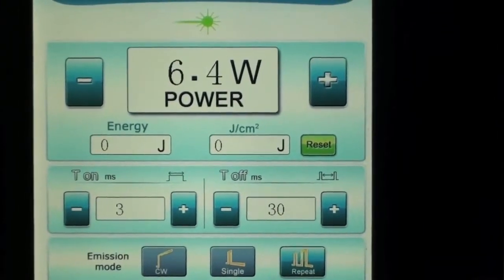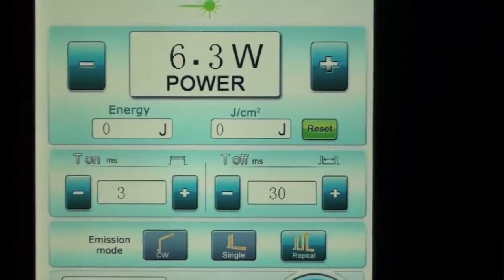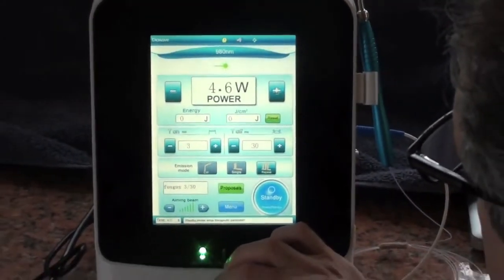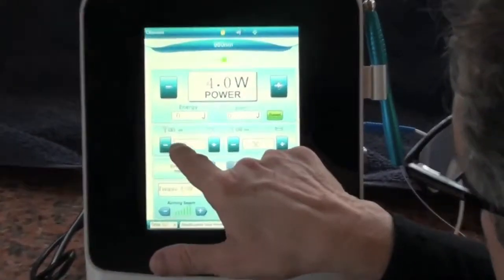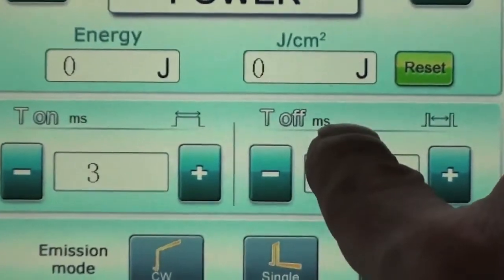If you press this and it's set wrong, let's say this one happens to be set wrong for some reason, all you do is adjust. Well actually it isn't. We're going to correct this for you right now. There it is at four, three milliseconds on, see the MS, 30 milliseconds off.